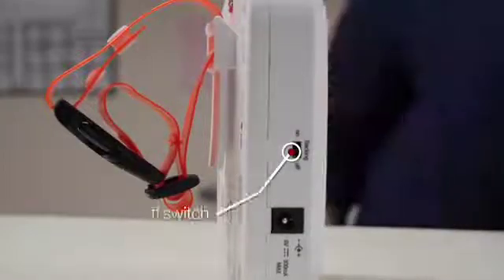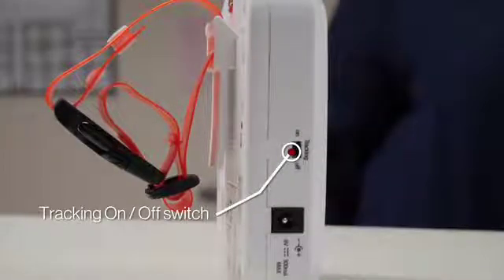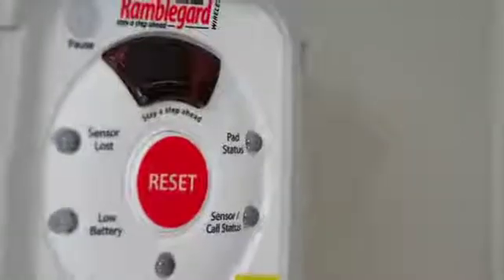This is the tracking on-off switch. If on, the companion regularly checks to ensure any paired sensor devices are within range.